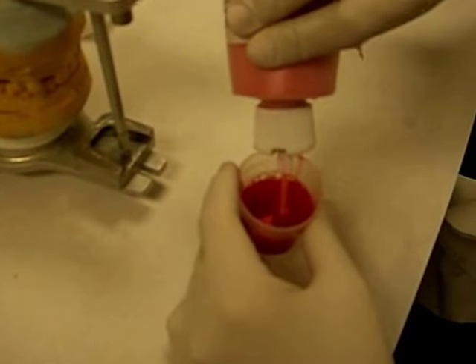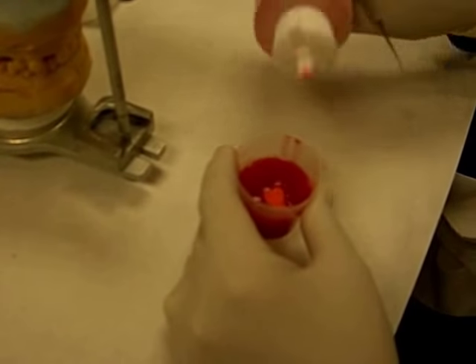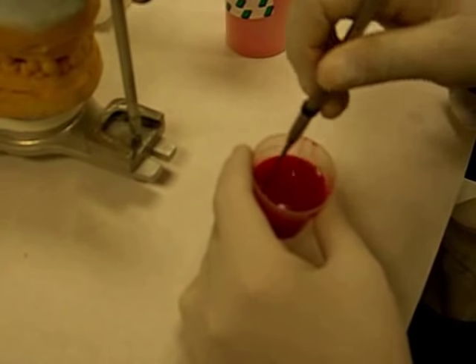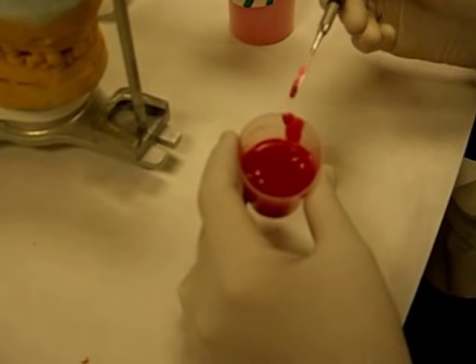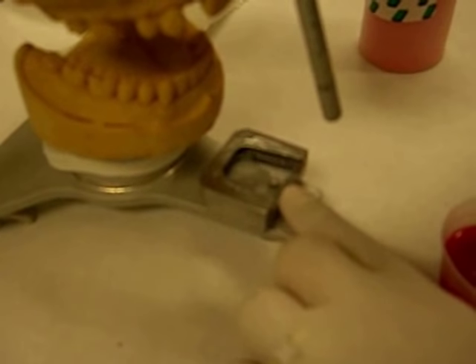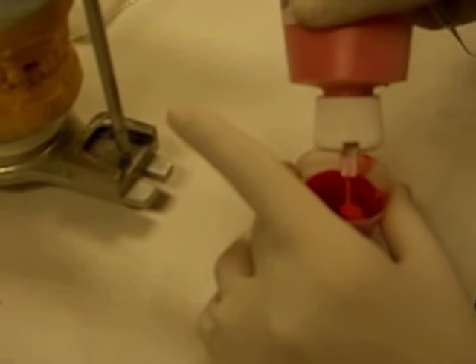If you were wondering, since we're using that table with different patients, how do we keep track? Of course, we need to put the patient's initials on the anterior guide table on the red acrylic. We'll be able to reposition it thanks to that pin that's sticking up from the table as well as the dovetail shape that the metal table has.